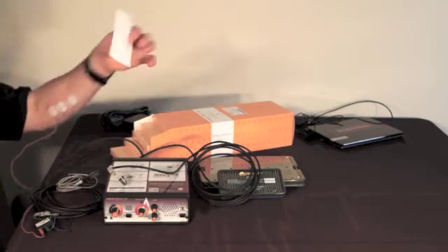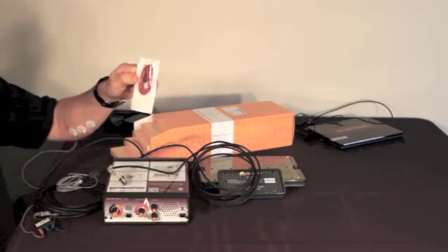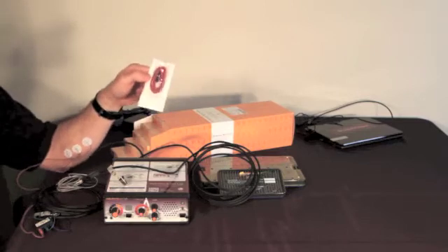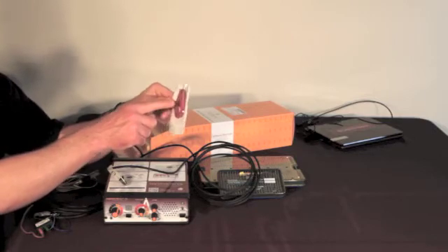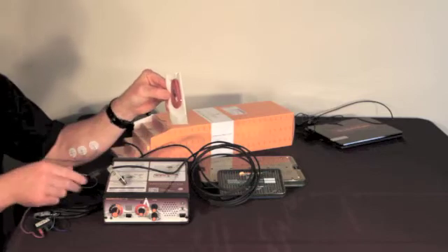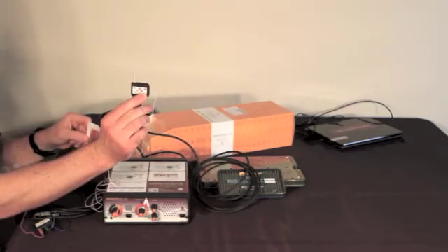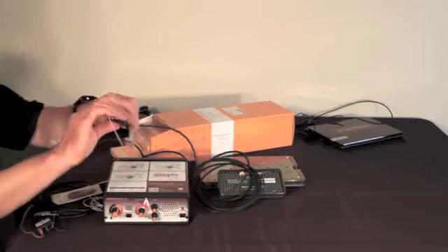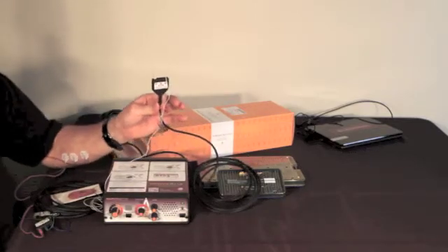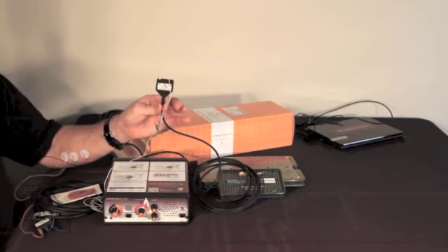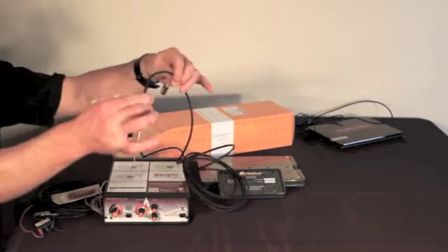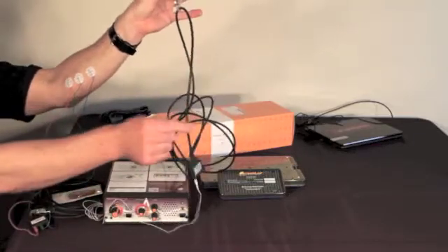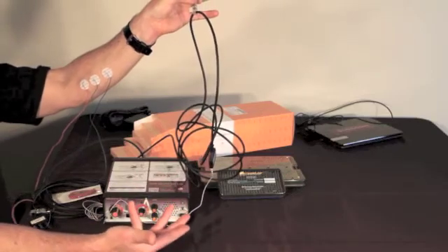This next inner packet that you'll find unlabeled has the red wire. One end of it is red, one end is blue. This is sterile. It needs to be dropped over on the sterile field. And the scrub nurse or scrub tech needs to pass out the red end off the sterile field to go into one of the red ports of the Stim cable. This is typically done after the surgery has begun. And for that reason, it's important to keep this cable assembly port accessible after the patient has been draped and potentially once the surgery has begun. I will often clip it to the table here but allow the head to hang down so it's easy to access from under the patient's drapes near the floor.